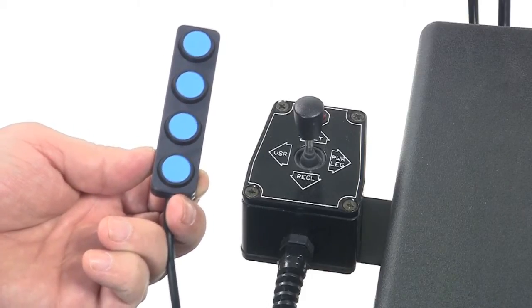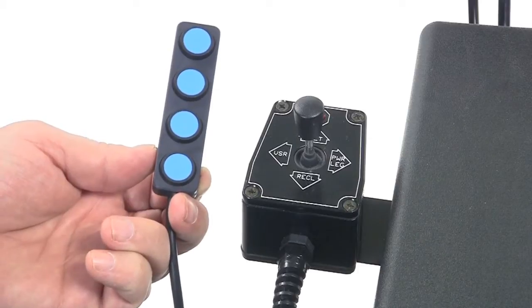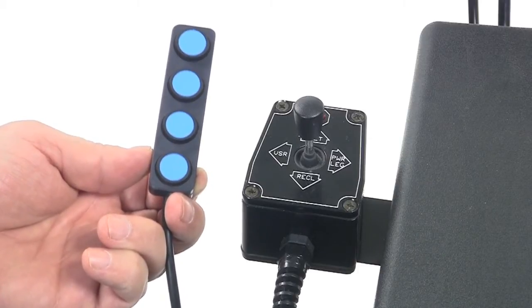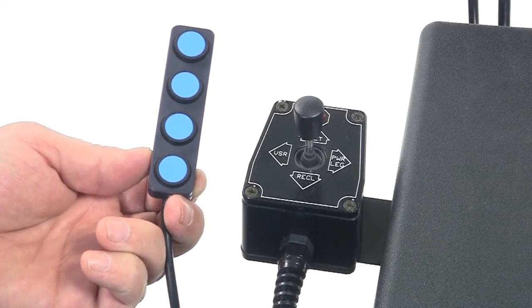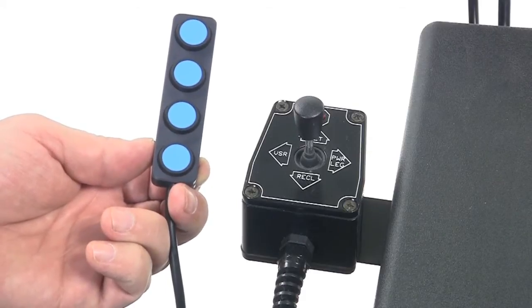Programming these switches will also be necessary if replacing a joystick, replacing a display, or when restoring programming to factory settings for any of several reasons.